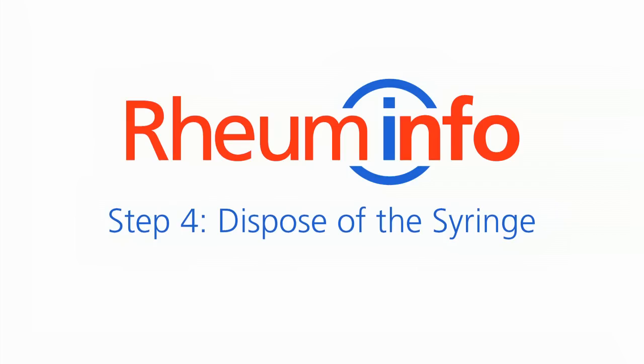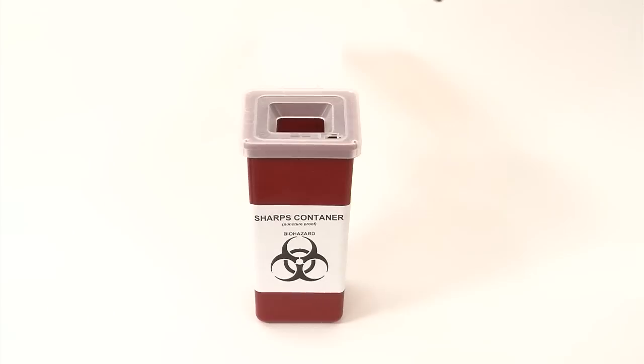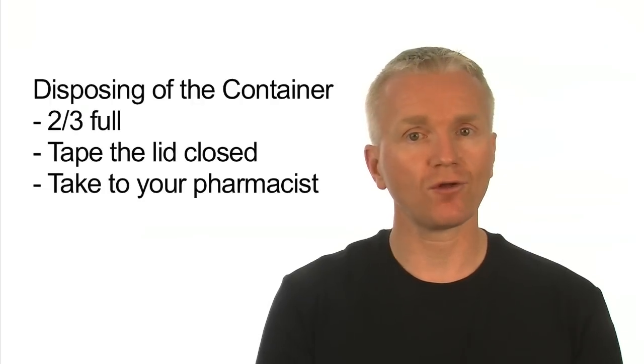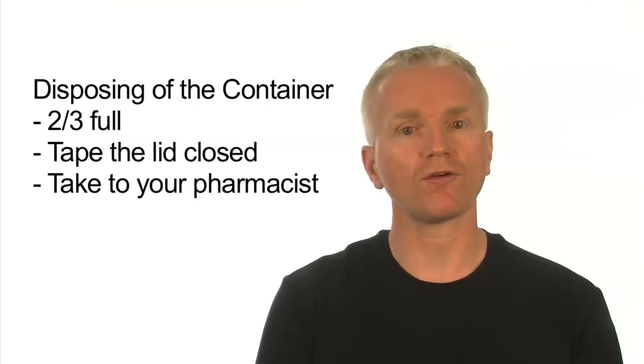Step four, dispose of the auto-injector. It's important to dispose of used auto-injectors in a proper container. These containers can be found at your local pharmacy. They're often referred to as sharps containers. Simply take the used auto-injector and place it in the sharps container. Store the container in a safe place out of reach of small children. When the container is two-thirds full, take the lid closed and discard of it as instructed by your local pharmacist.